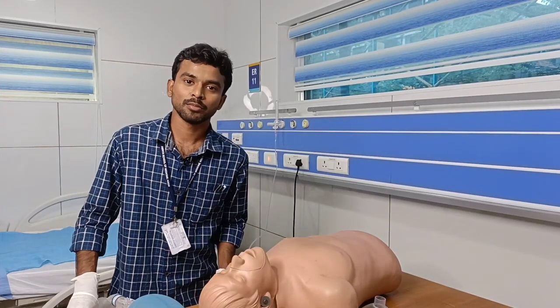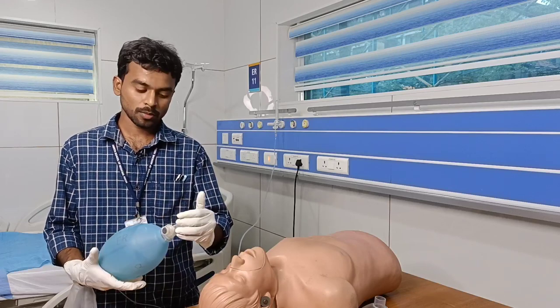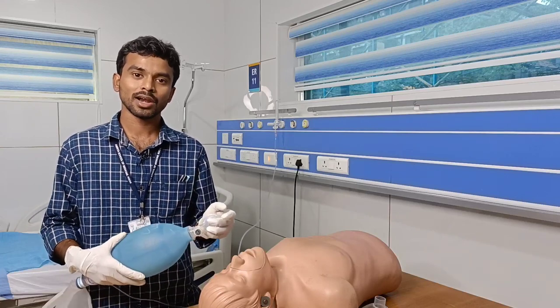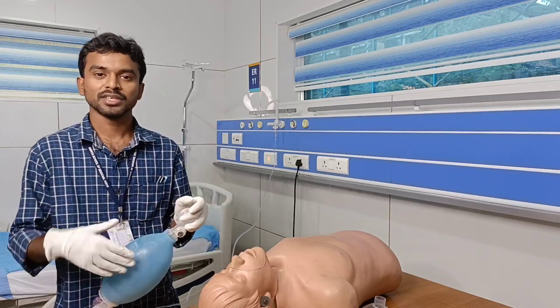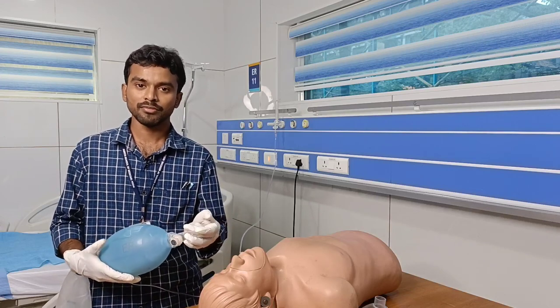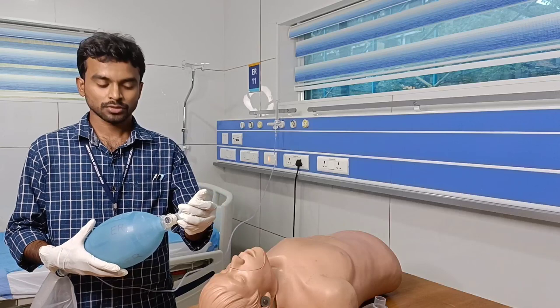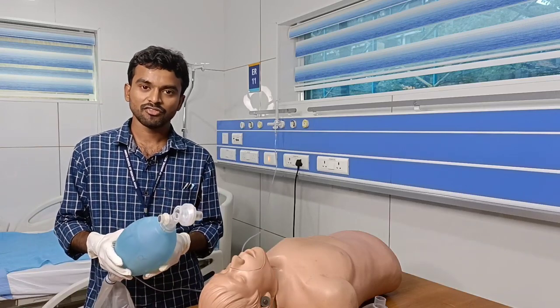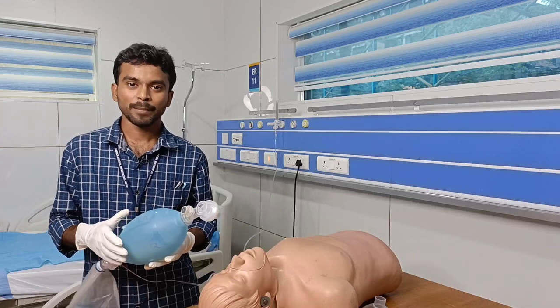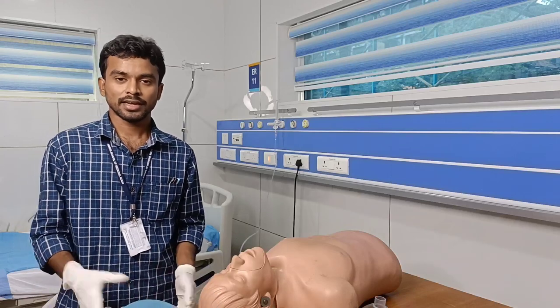The bag mask ventilation, or bag valve mask device, is a device used to deliver positive pressure ventilation to patients who are not breathing adequately or not breathing at all. It can be called by many terms: self-inflating bag, bag mask ventilation, AMBU bag (Ambulatory Manual Breathing Unit), or manual resuscitator.